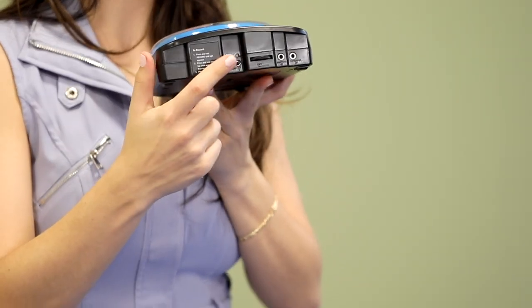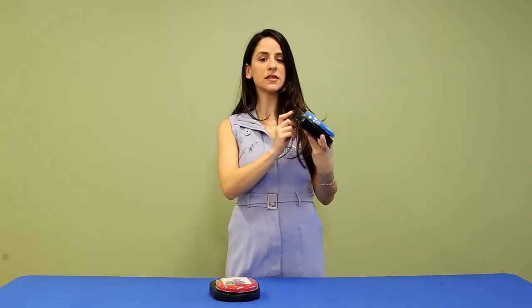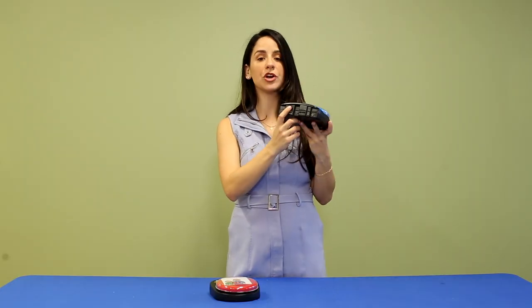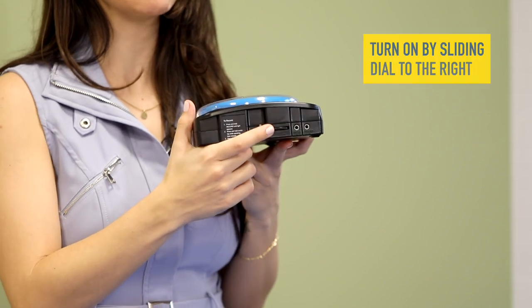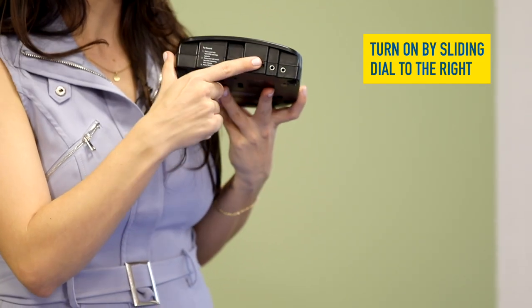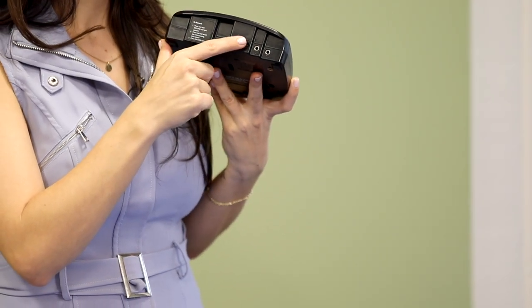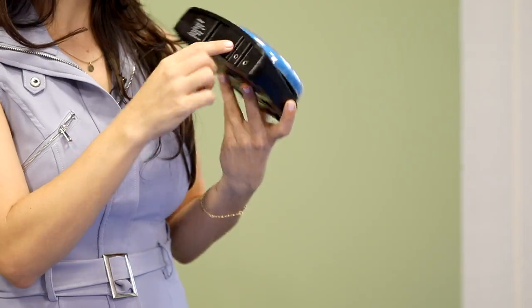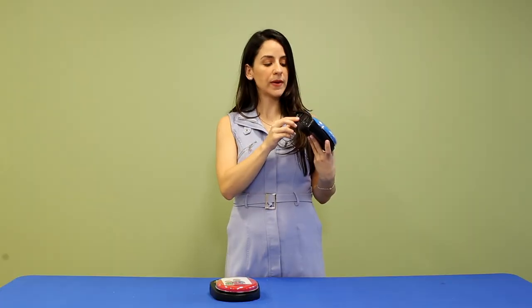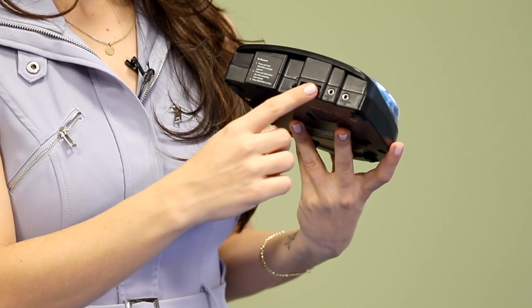On the back, we have the volume dial. This is also where we turn on and off the Big Mac by sliding the dial to the right. When we see the red light switch on, we know the Big Mac is on.